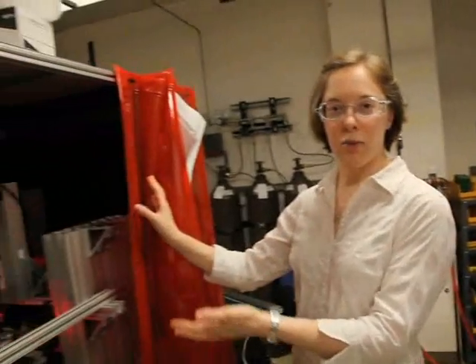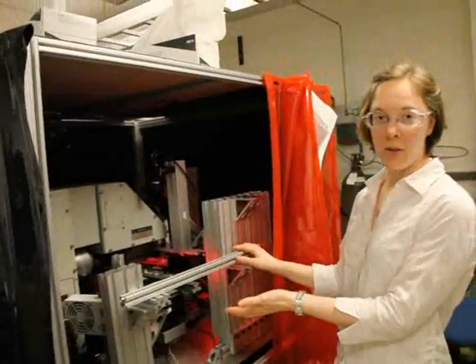This machine here is an additive manufacturing machine. What you see with this machine is a process we're developing to eliminate the dicing and instead print, like a newspaper, the pattern and design of the probe. This process, called additive manufacturing, will reduce hours from the transducer manufacturing process.